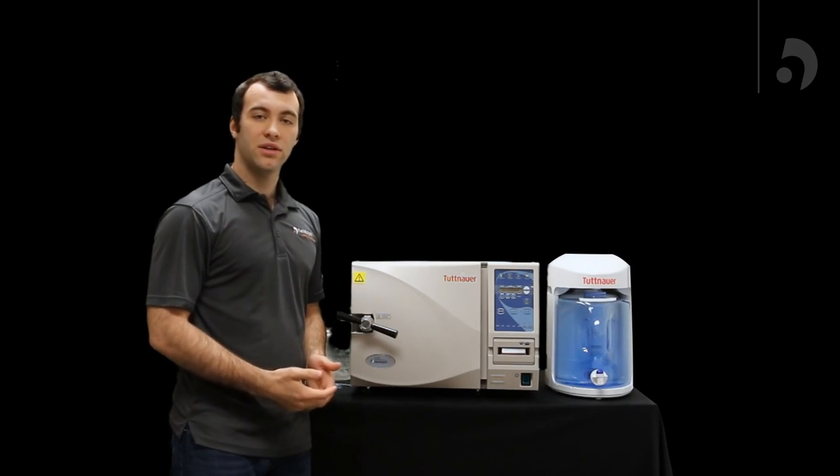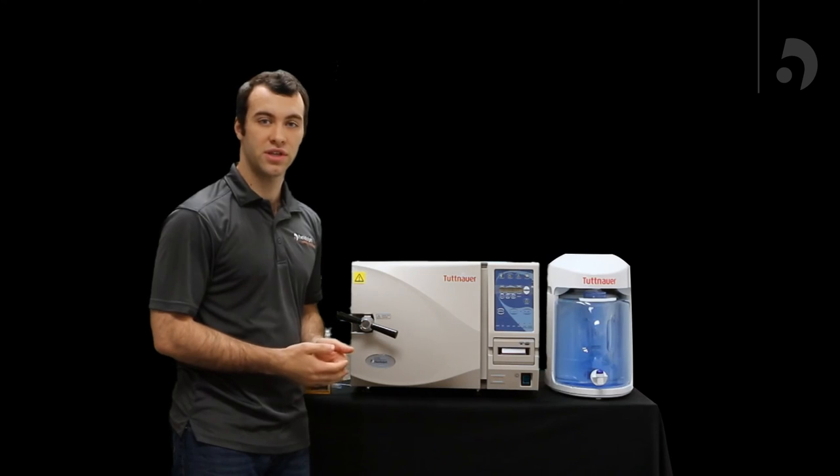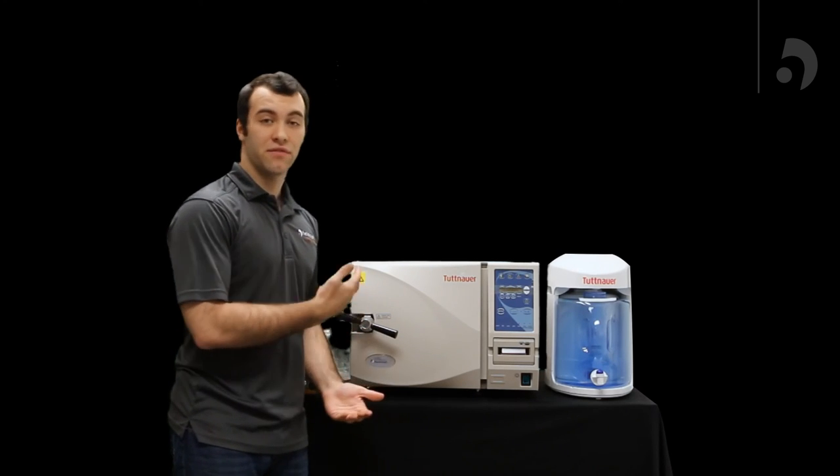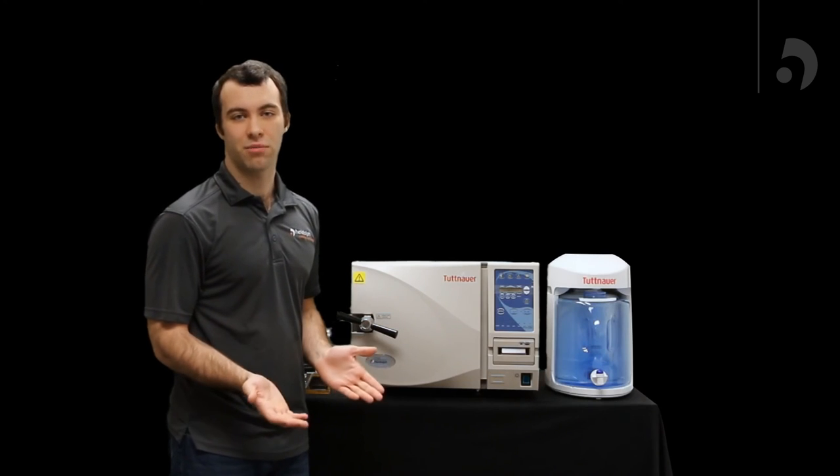However, we recommend you do a dry cycle before you sterilize anything important. And we will show you how to do that, along with basic operation and maintenance of your unit in the following video. Thank you very much.